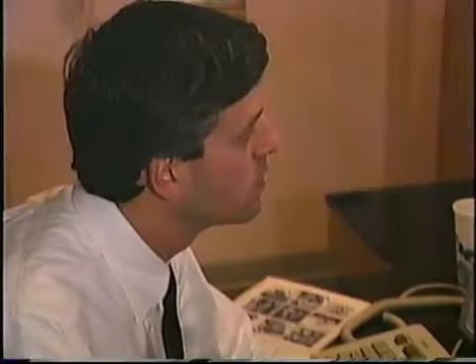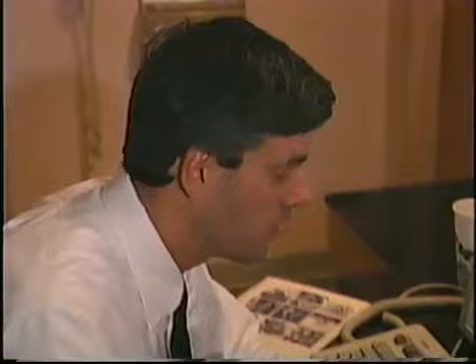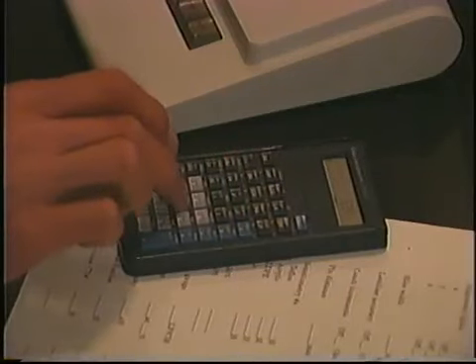Use the scanner's measurement tools to determine the length of the wire ramp. Because we use 23-degree ramps to increase accuracy, the measured wire length must be multiplied by 0.42. The 23-degree angle is very nice because it gives us essentially a 2.5 to 1 magnification in the image plane, which makes the measurements of slice width much easier to make and much more accurate, particularly for thin slices.